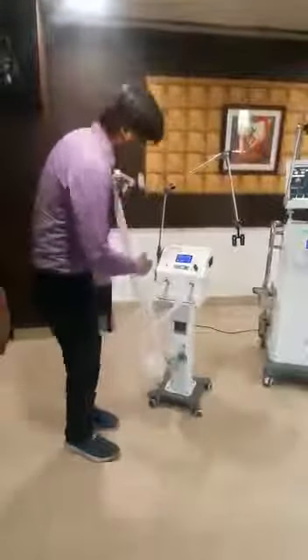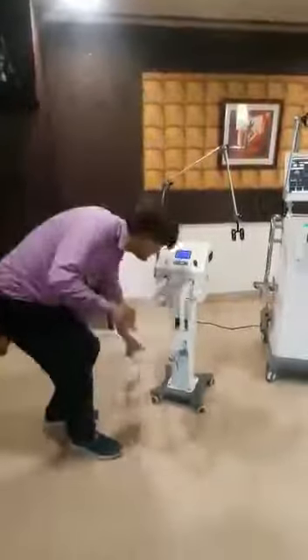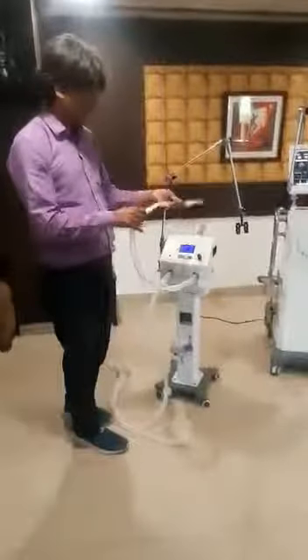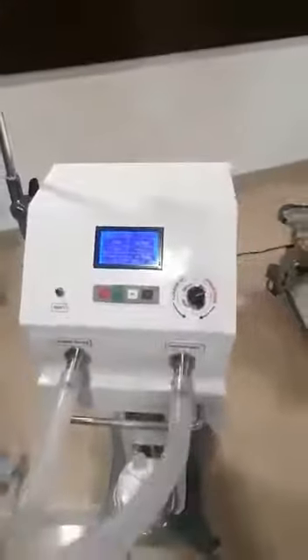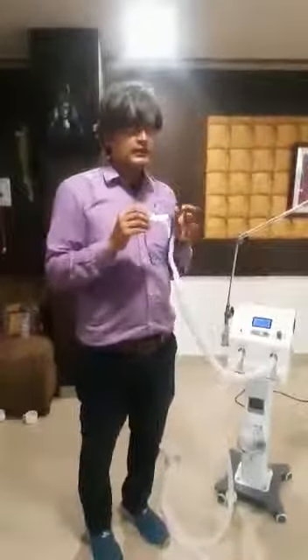Also, I can use this machine for high flow nasal cannula. So this is my high flow nasal cannula. I have to change the mode here. You just have to change the pressure trigger and the timing, and with this kind of setup it is trigger based. Based on the patient's trigger, it will give the inspiration support, and when I start expiration, the flow is off.